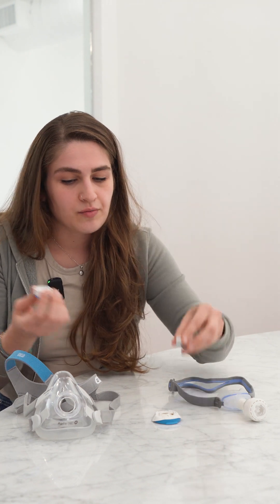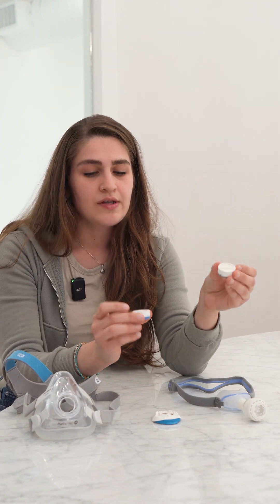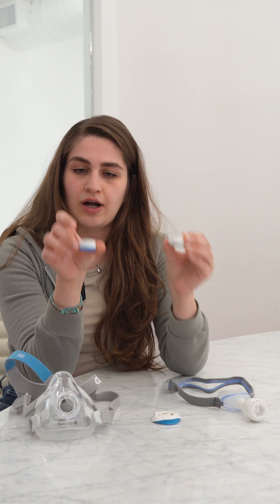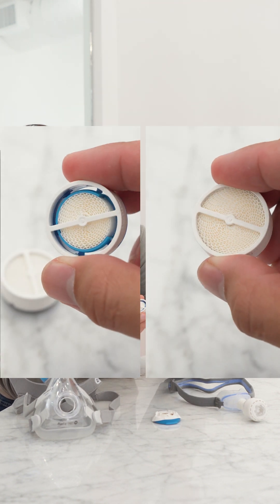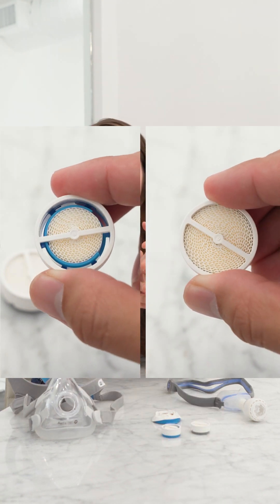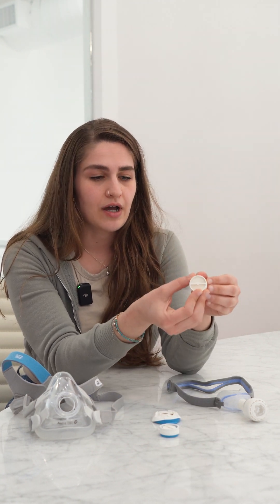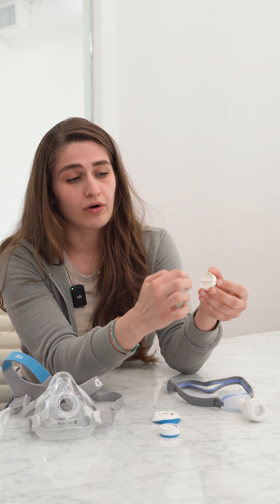There are two different styles for all but the full face masks — the Humidex Plus and the standard Humidex. They're labeled on the package and color coded. The standard has fewer paper ridges, meaning it holds less moisture. For humid areas like Florida or standard climates, I'd recommend the standard. The Plus is recommended for dry climates or high altitudes because it has more paper ridges to capture more moisture.